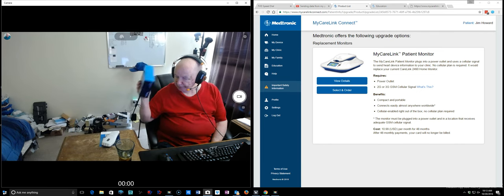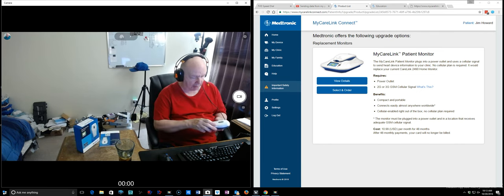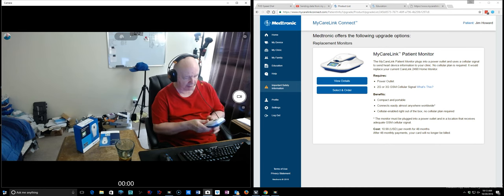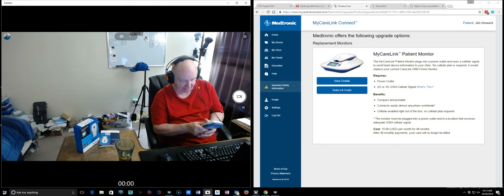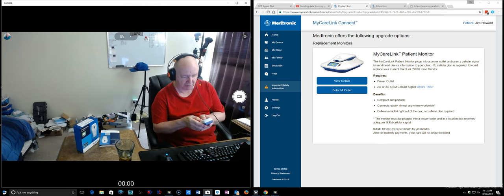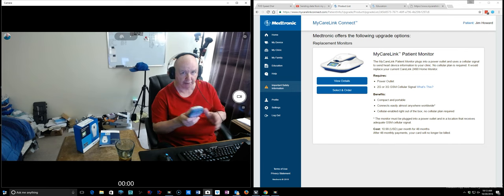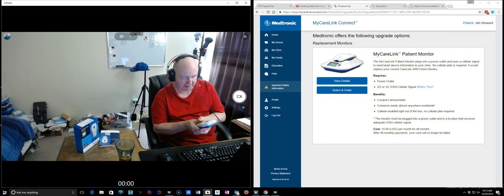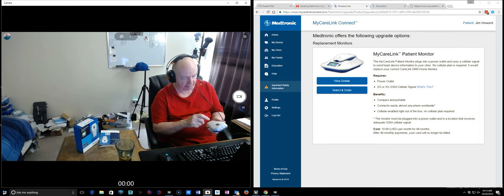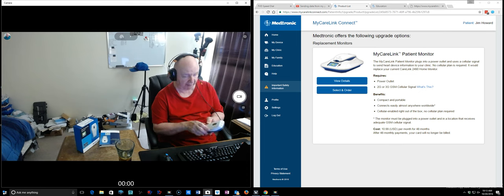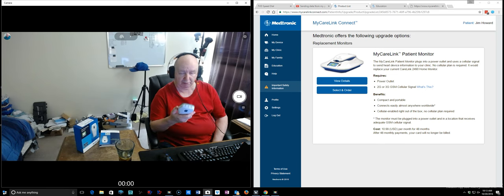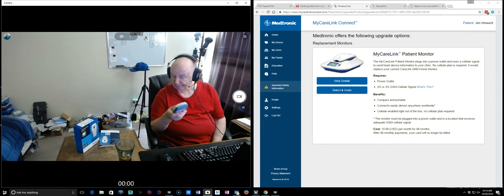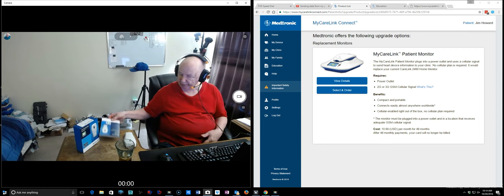This comes with three batteries. This slides off to put the batteries in. I had, and I still have, I got it off. Man, you're going to have to, you may have to call 9-1-1, I'm joking. But I can't, you know, I had to pry it a little bit. I finally got this thing off and I finally got the three double A batteries in there. And I hope these batteries stay charged up a long time because getting it, at least on this one, getting it open is a son of a bitch.